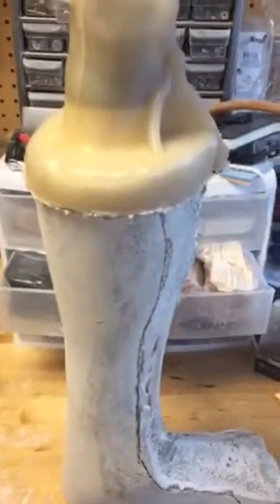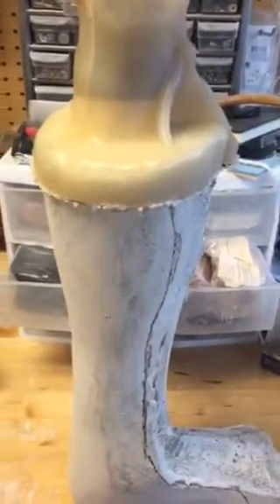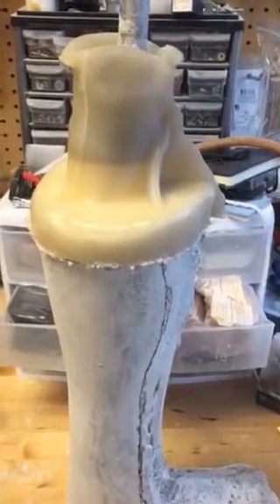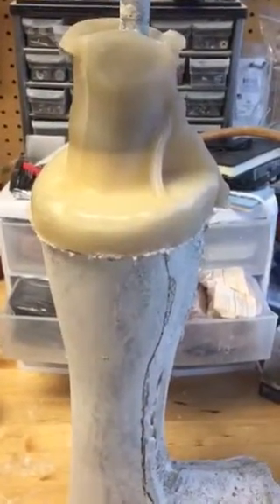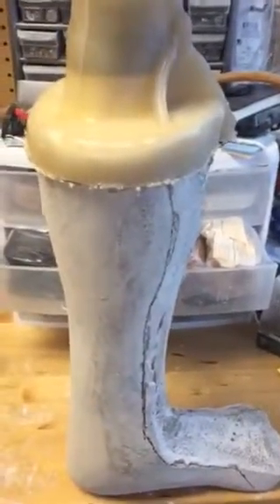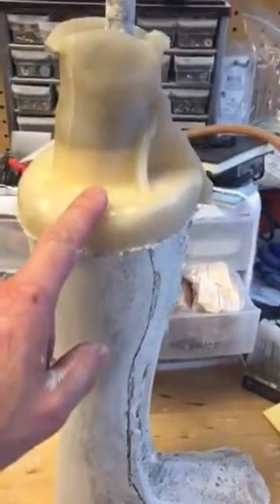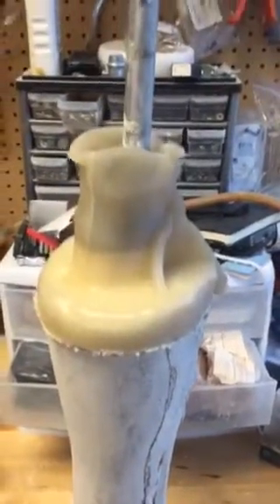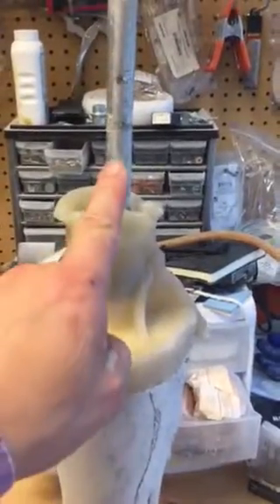You can see that we don't use the top portion of the mold because it's basically not used by the patient. We're soon going to reuse the plaster portion of this, and potentially find a use for this plastic itself without throwing it away.